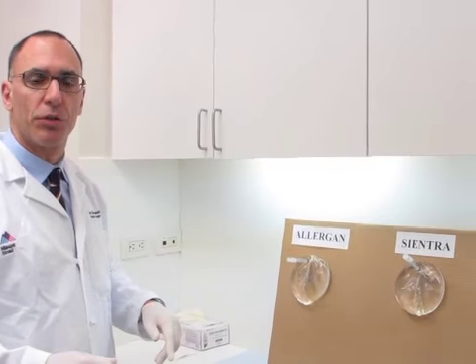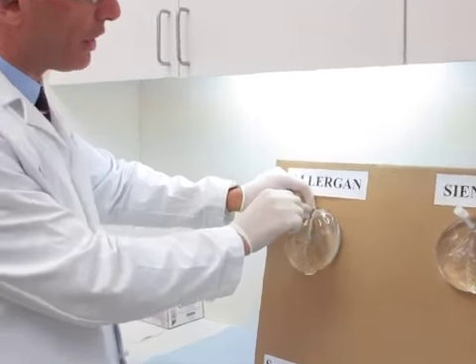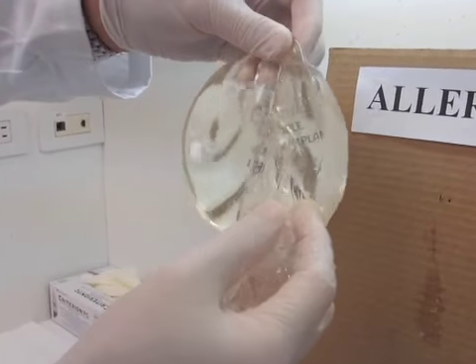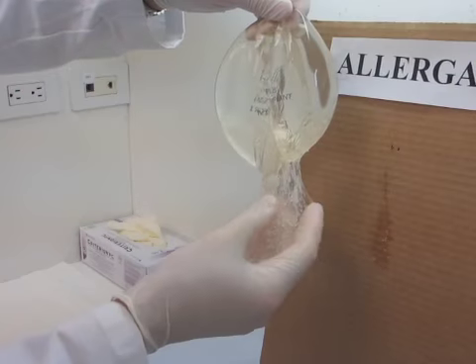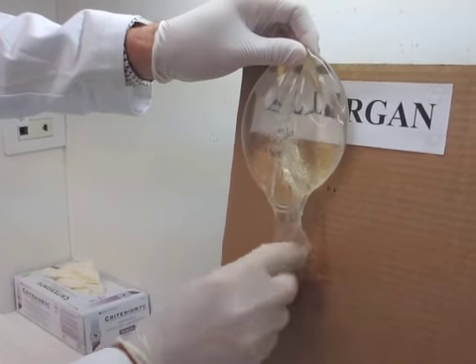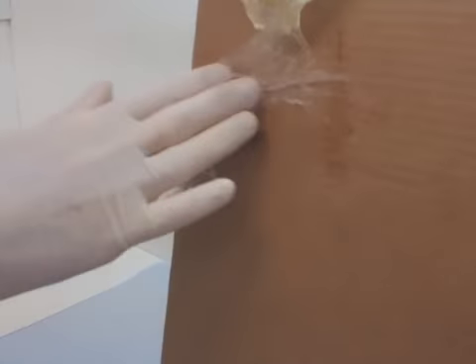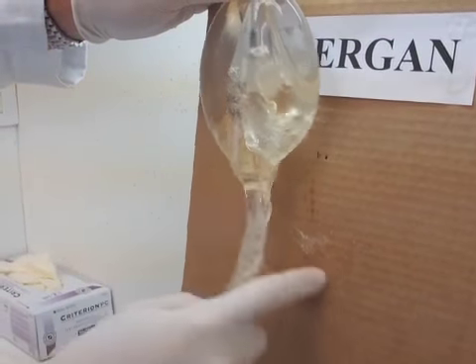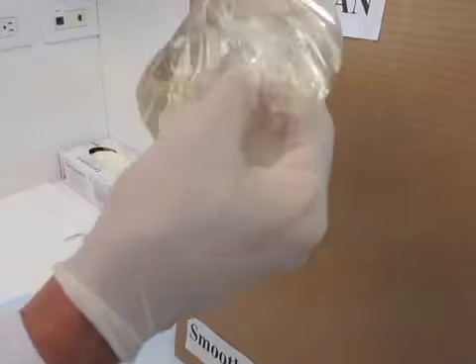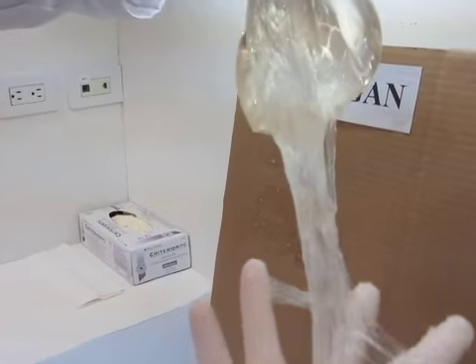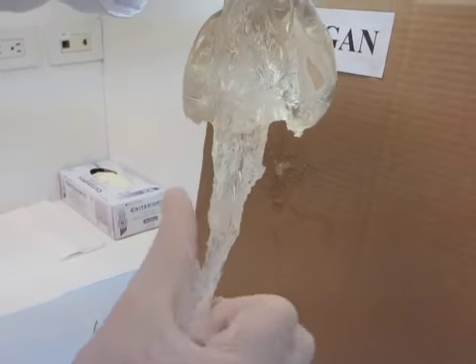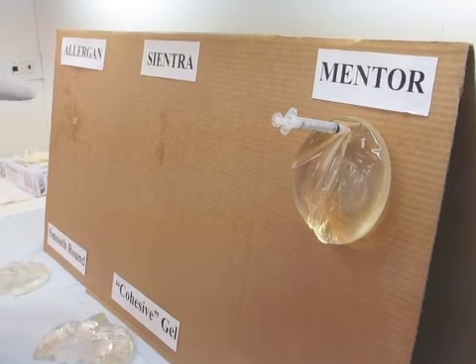So what we're going to do is look at these three implants. None of them are dripping out. Interesting for both me and you to see. So I'm going to start with the Allergan implant. This is the shell, which is a silicone shell, but it's a different consistency, the outside. So here is the Allergan implant. And you can also see how on the cardboard it's already staining it. And I'll rub it on there so you can see what happens when it touches another substance other than my hand. It sort of stays there and it doesn't come off. There's a film on there that will stay with these implants. So let me go to the Sientra implant. So here we are. Sientra implant seems to be more cohesive than the Allergan. As I'm dislodging it from my fingers, it all comes off as a cohesive mass.